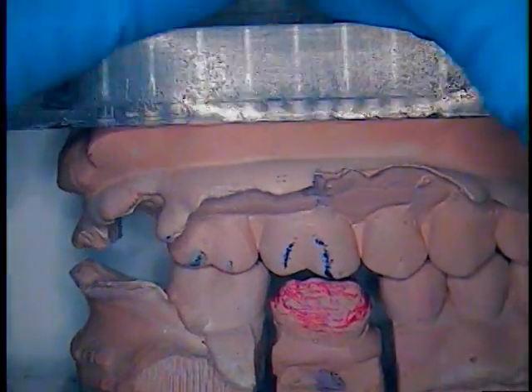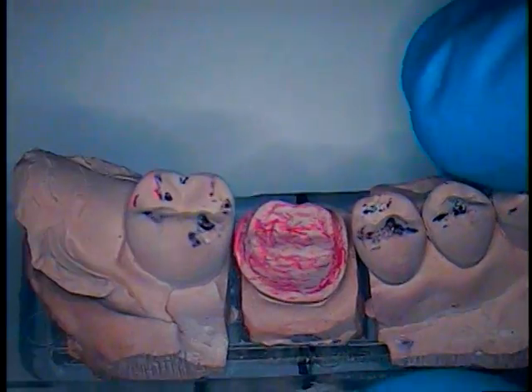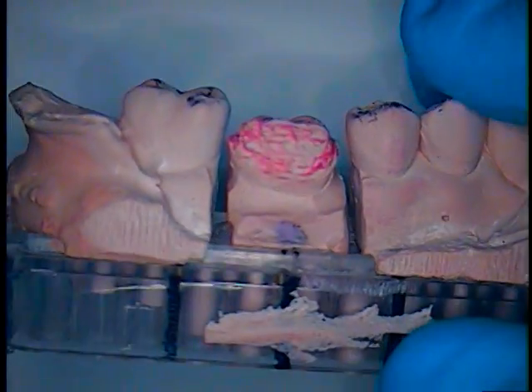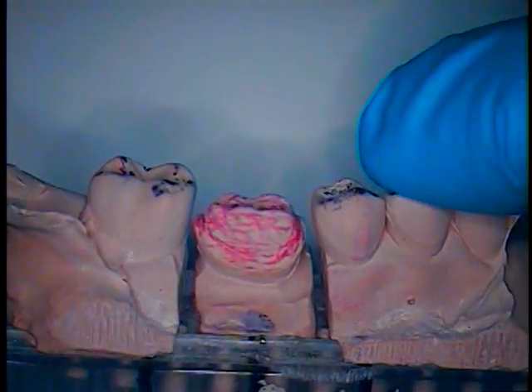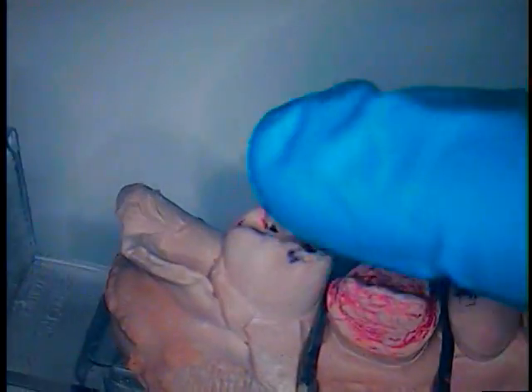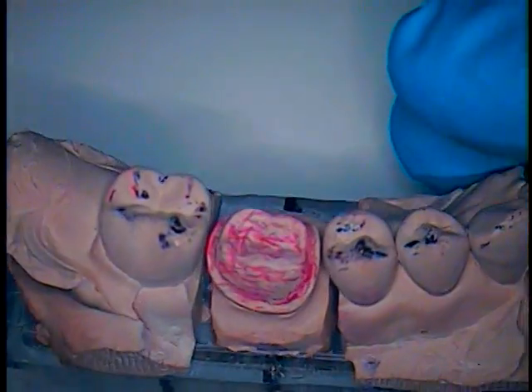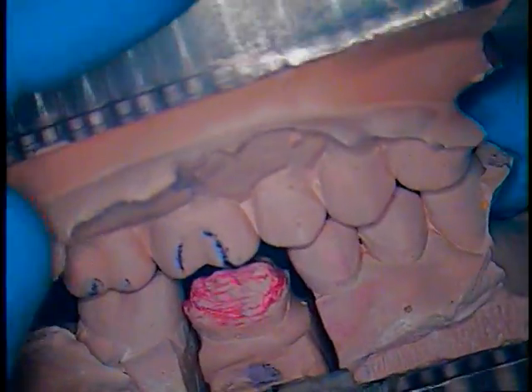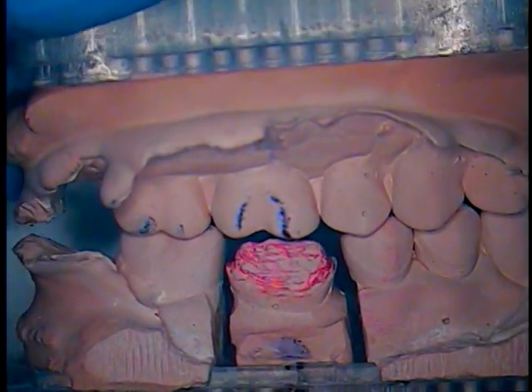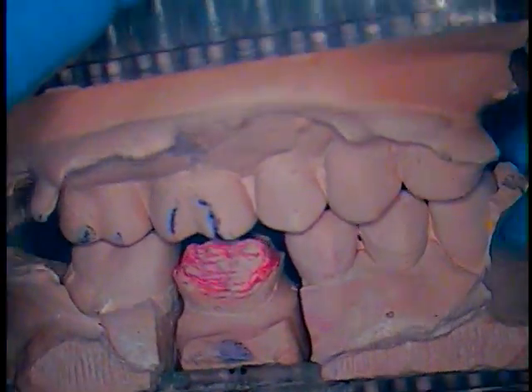So this is what the students are making right now, and so you notice a lot of work applied to the models. They have to be individually removed and sawed out on the stone. There's a powder to water liquid ratio that has to remain constant, so we weigh the stone out and measure the water with a graduated cylinder, and then mix the two together and come up with an outside the mouth typodont, or laboratory work. We also call this an articulator.